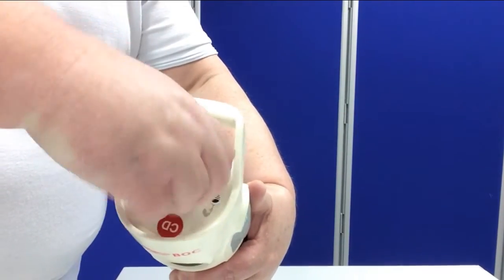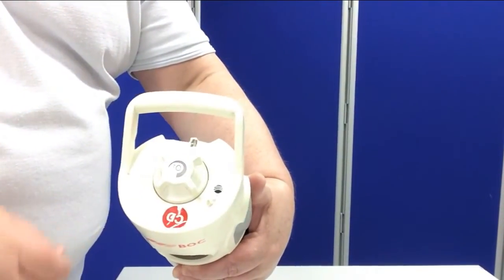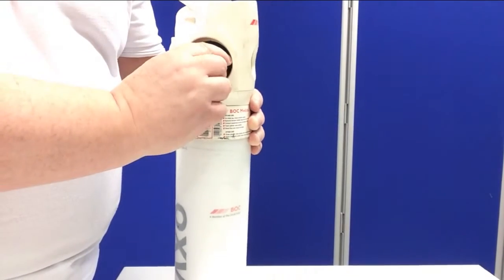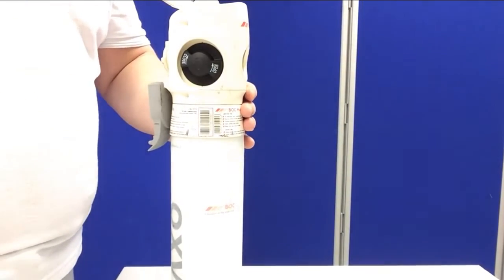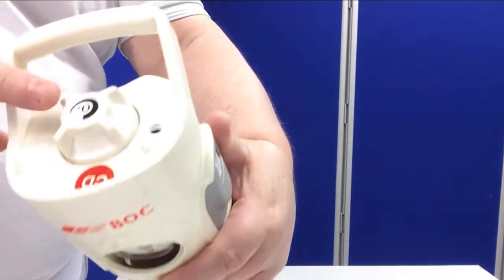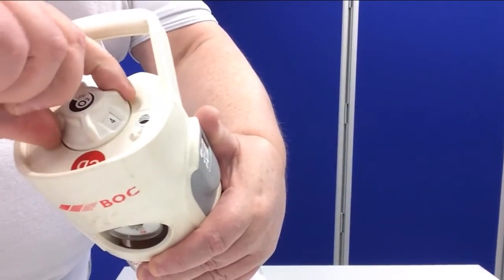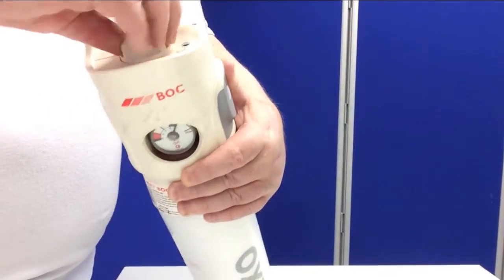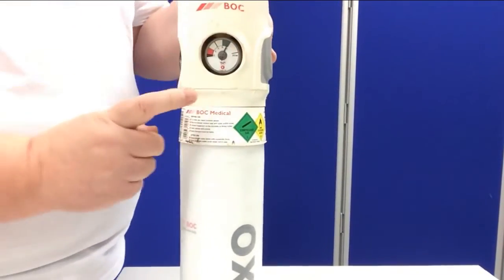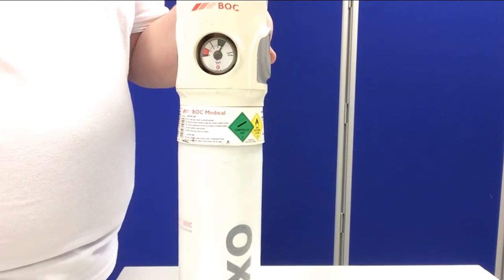When finished, put it back to zero. Close the valve. And to prepare it for the next use, run through the small amount of oxygen that's left in the head. And that's it now, ready for the next use. Just check that there's plenty of oxygen left.